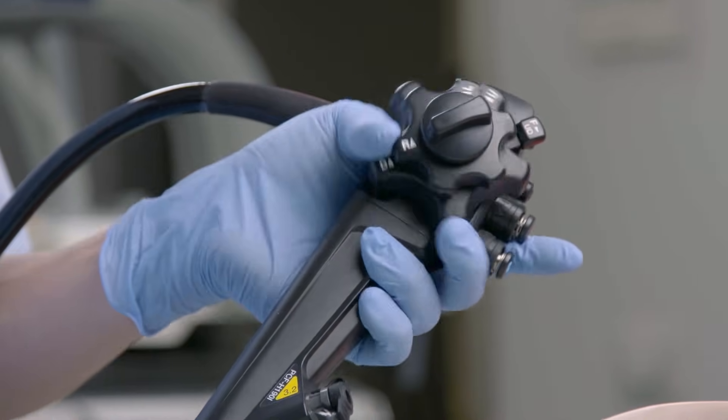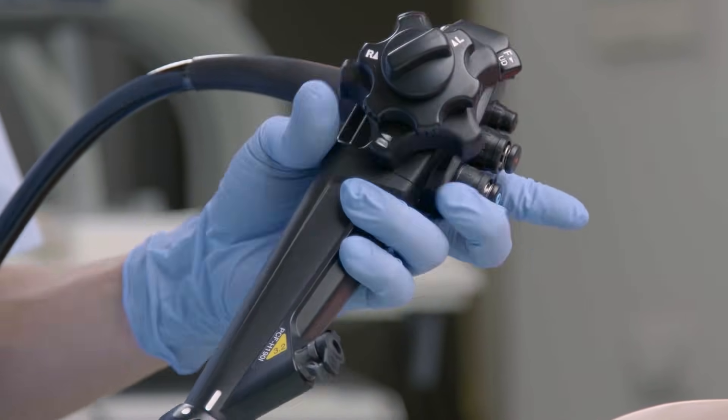Repeat these movements until you feel comfortable with the knob angulation movement.